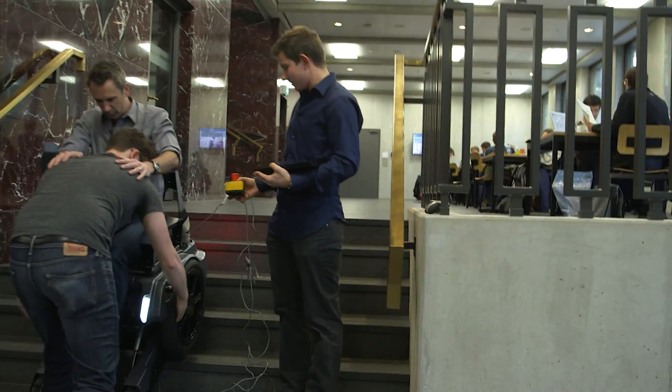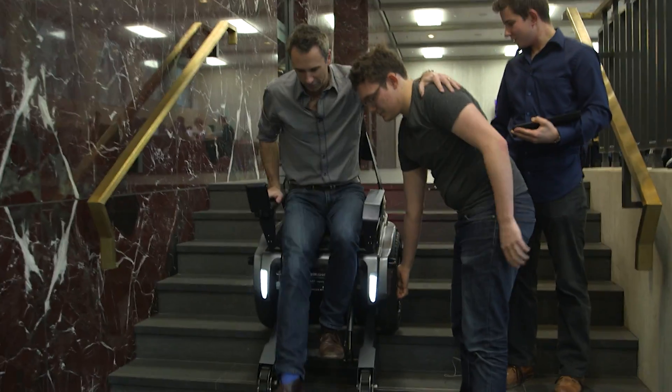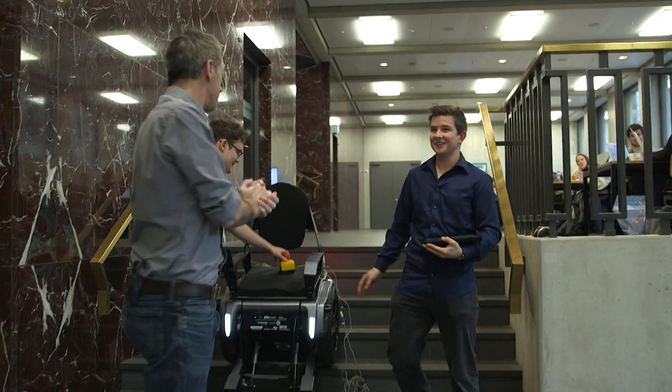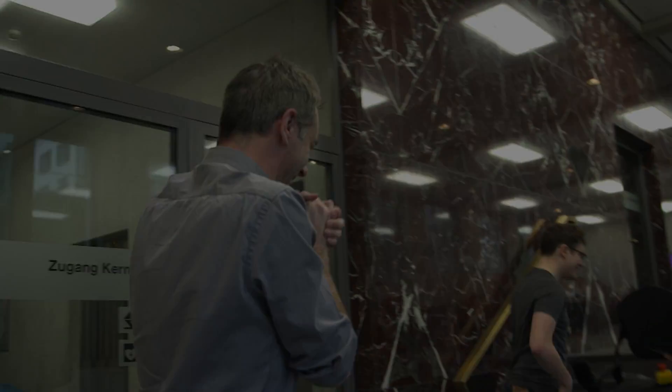So all in all, a successful test. Now it's easy. Now I get out. So... you want to buy it? Yes, I would clean the cushion first. Ha ha ha ha ha.